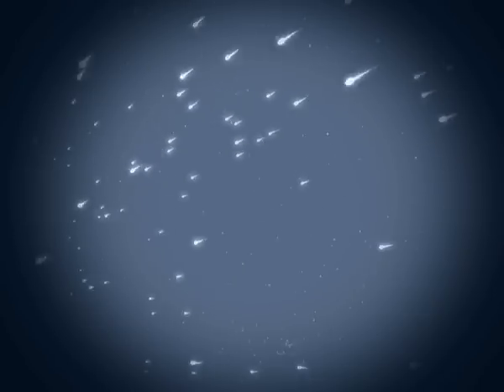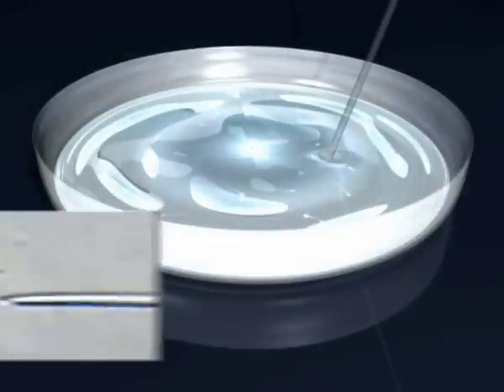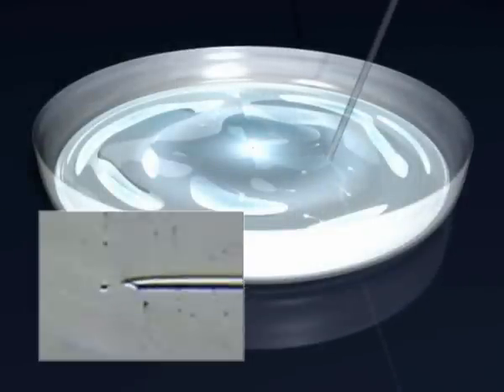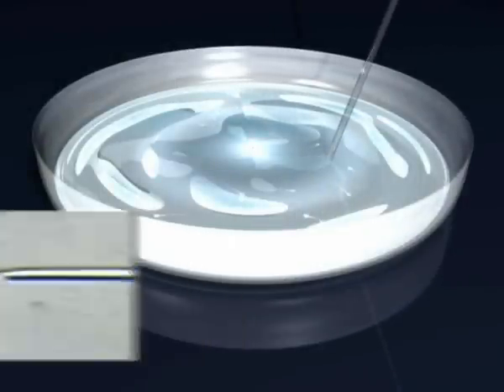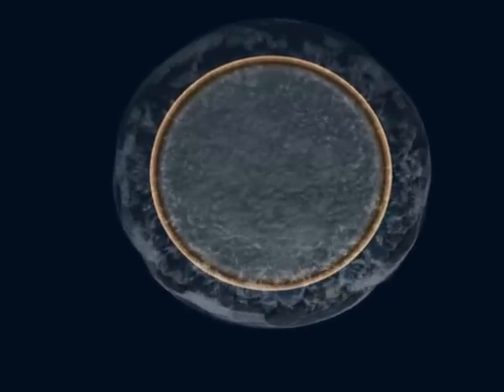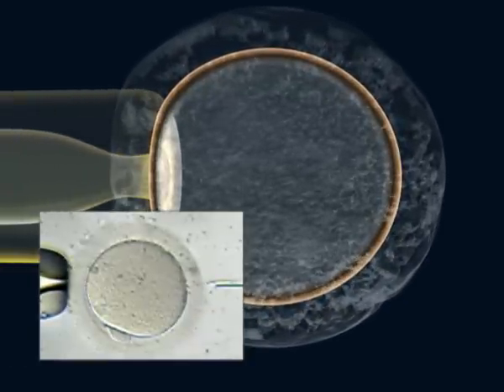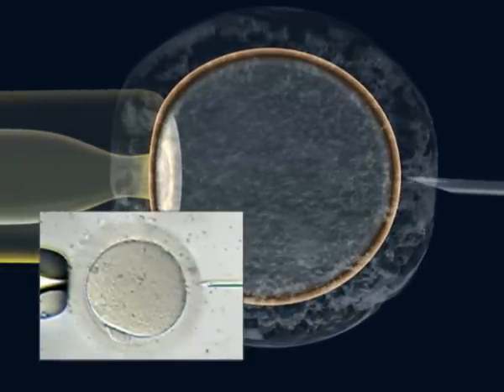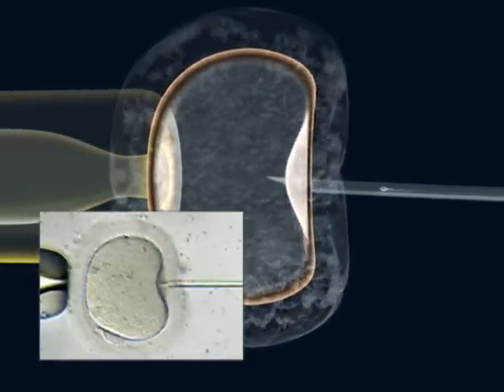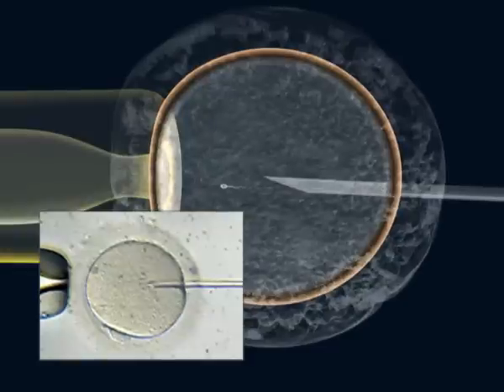In intracytoplasmic insemination, one of the best sperm is selected. The tail is immobilized and is aspirated into a fine needle. The oocyte is fixed with a micropipette, the other side is pierced by the needle, and the sperm is injected into the oocyte.